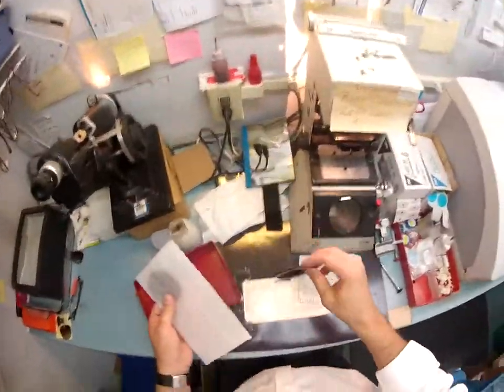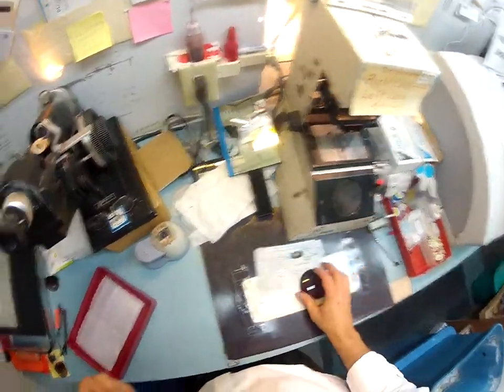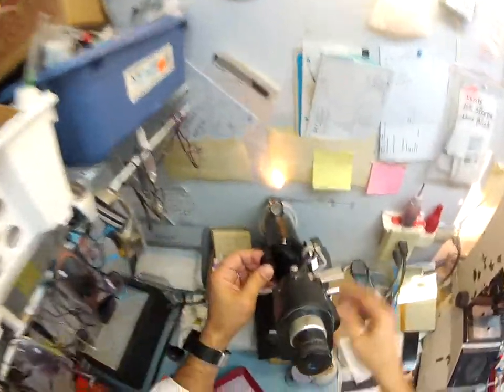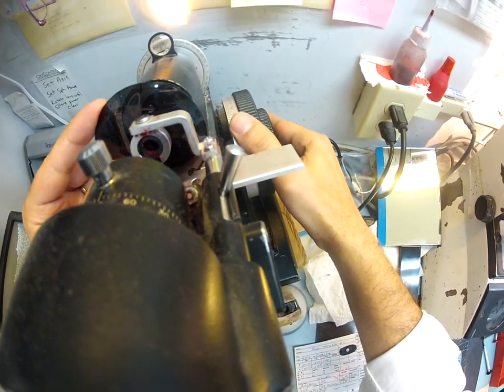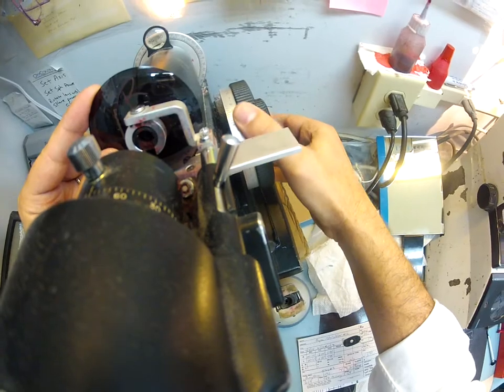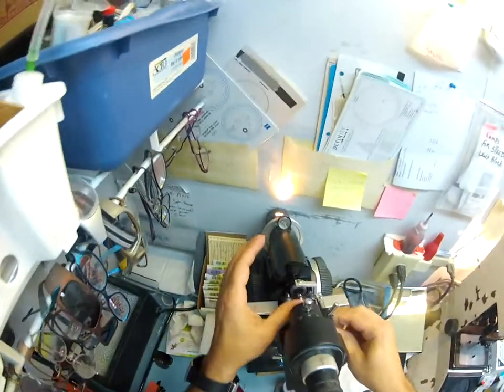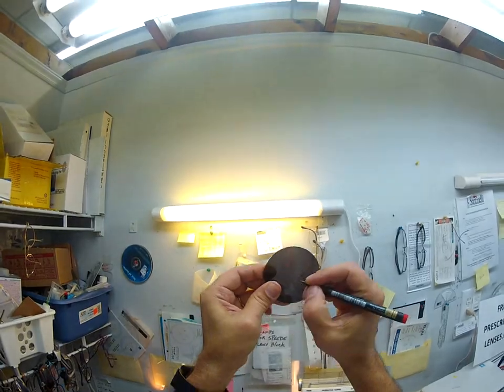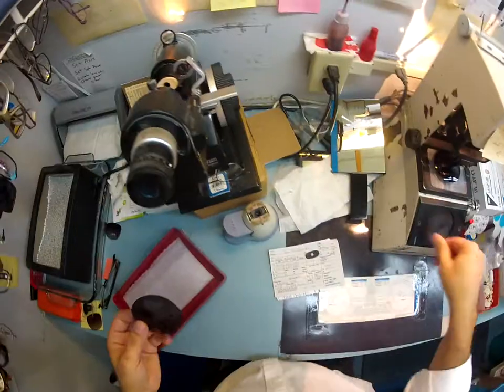I'm going to take your right lens. Your prescription is plus a quarter, minus two at 90. I'm going to put the axis wheel on 90, spin the power drum to plus a quarter, put your lens in, rotate it until the sphere power is coming clear. I'll check the astigmatism correction, raise this up just a little bit to the center of the lens, check everything again — we are perfect. That's the right lens. Let me start cutting.